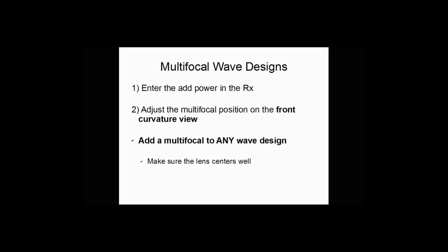To create a multifocal you simply enter the add power in the Spectacle RX box and then you can adjust the multifocal position on the front curvature view of your contact lens design. You'll see you can add a multifocal to any wave design. You just want to ensure that the lens centers well.